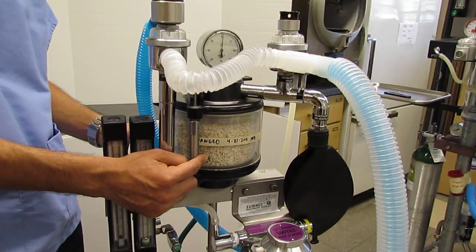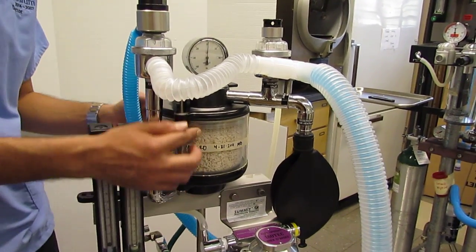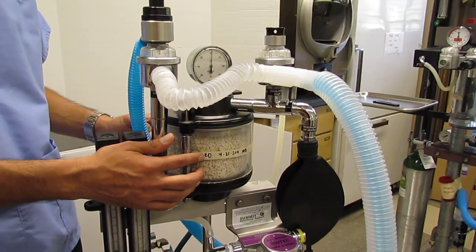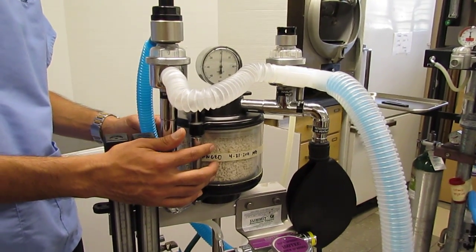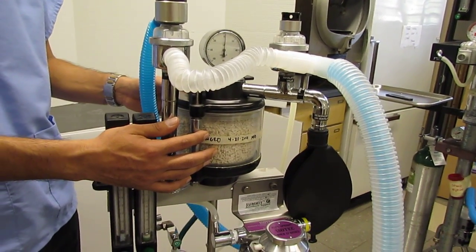Just be cautious about that because sometimes when you stop using the machine, depending on the gas that you're using, that color change may go away. So that doesn't mean that you are back to usable sodalime. It just means that it's because you're not using the anesthetic gas at the moment.